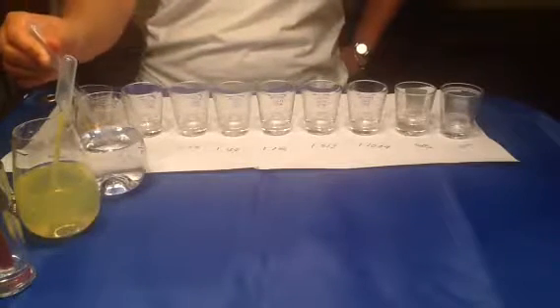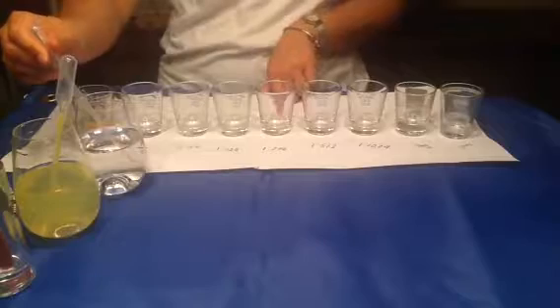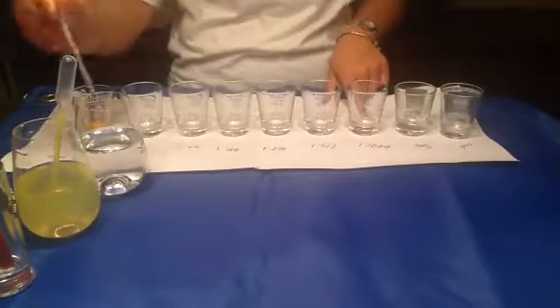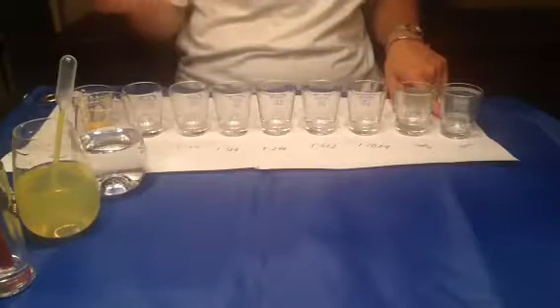So I'm going to do a two-fold serial dilution. I'm going to start with 500 microliters in the first tube, which is 1 to 32. The second tube is 1 to 64. Add 500 microliters of saline to the third tube, 1 to 128, and another 500 microliters to the fourth tube, which is 1 to 256. Sorry, the fourth tube is 1 to 512, and my last tube is 1 to 1024. And I'm going to add 500 microliters to my negative control, and to my last one, 500 microliters for my positive control.